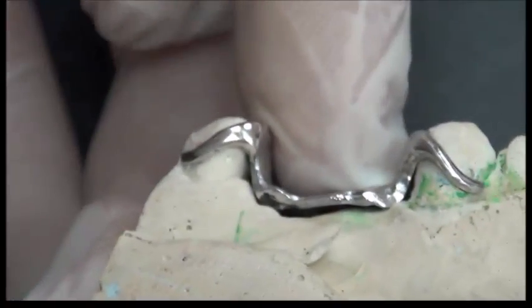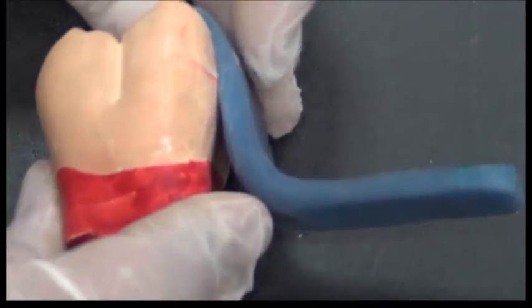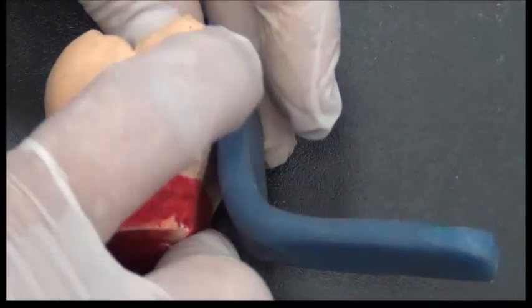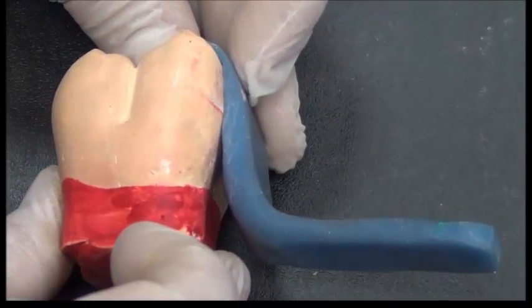So how do I determine where to place my guide planes? This is another function of the surveyor, where I decide what is the best tilt by which guide planes are present on the teeth, and then I trim them in the clinic.